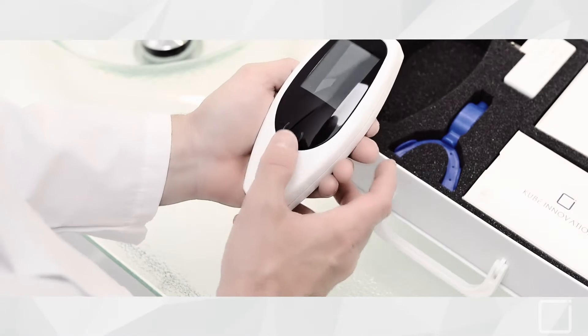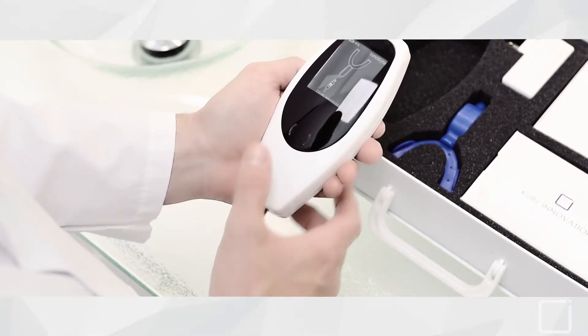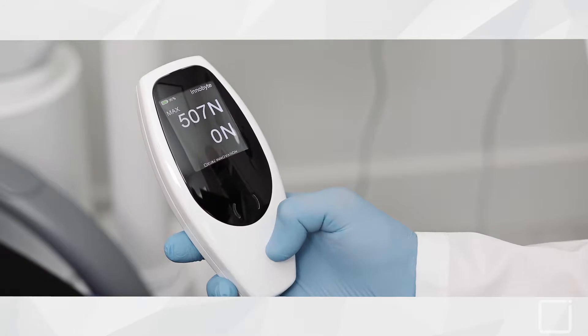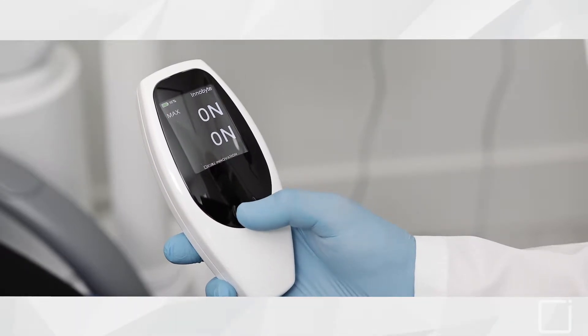To switch on the device, simply press the multi-function button. This button will also reinitialize the display before taking a new measurement.